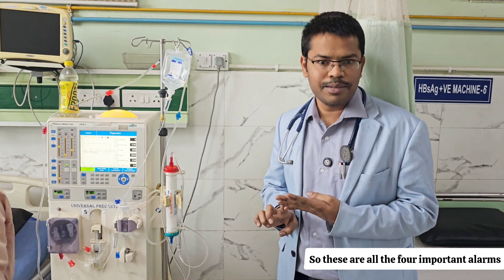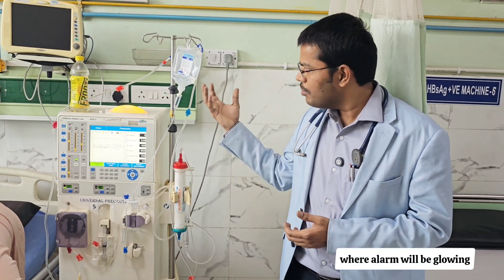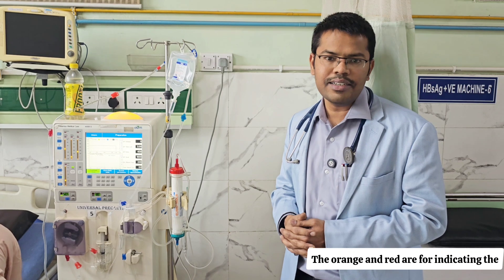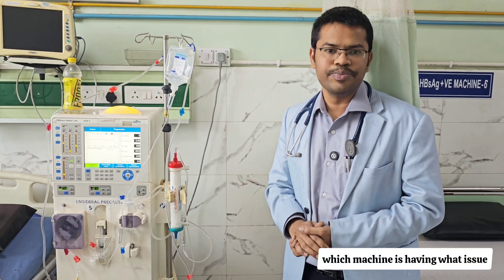Before going into particular alarms, note that certain alarms will stop the blood pump, while certain alarms only glow without stopping the pump. There are color codes as well — orange and red indicate alarms visually. In a unit with 20 or more machines, by sitting at the console you can see which machine has what issue.